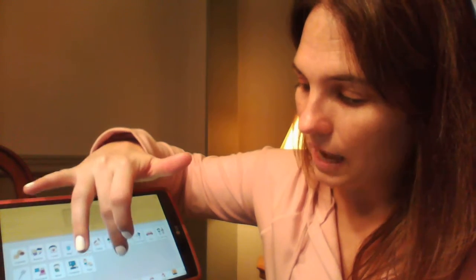So this is my device. I do use augmented communication systems through an app, not this app specifically, but a different app with a student in my classroom. And it definitely has helped us understand him better, him communicate with us, and be a little more willing to try and communicate, because it's a lot easier to find pictures throughout here than it is to say the same word over and over again that no one's understanding. So that is my app. The app again is called Card Talk.